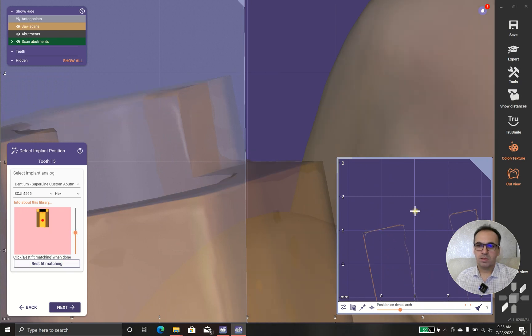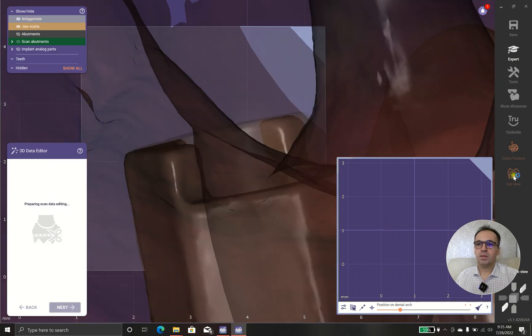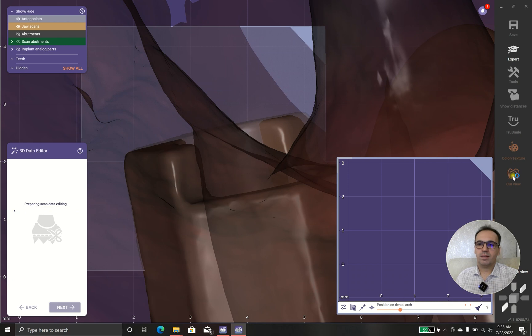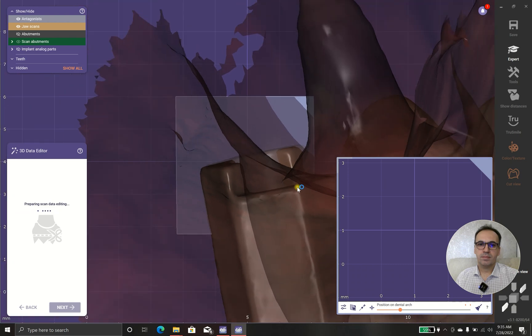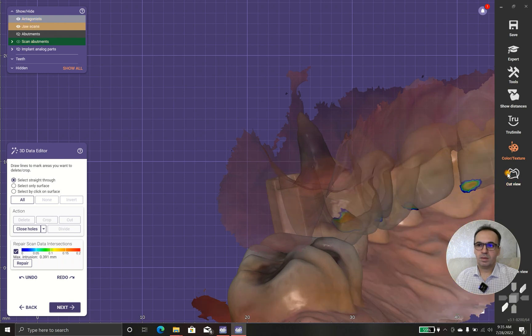So I tried it. This is far better. Okay, when you're completely sure that the setting is perfect, you can go further and continue the design.